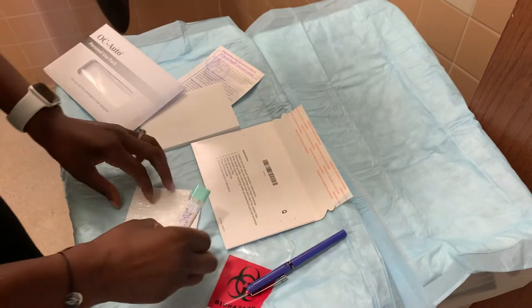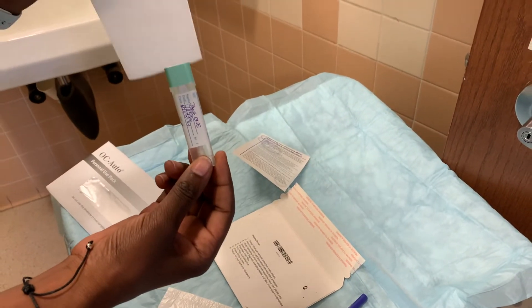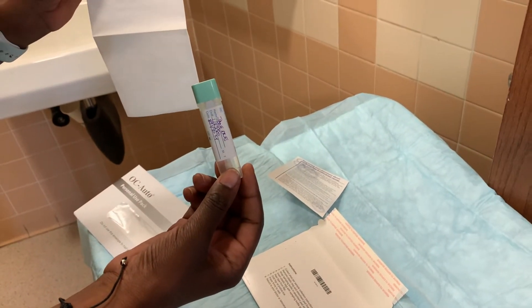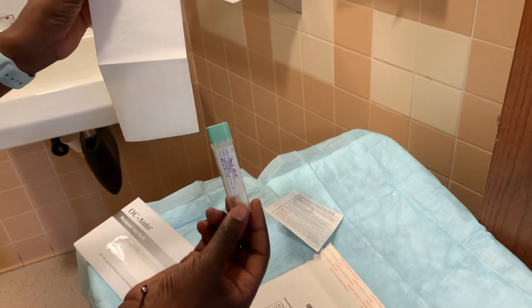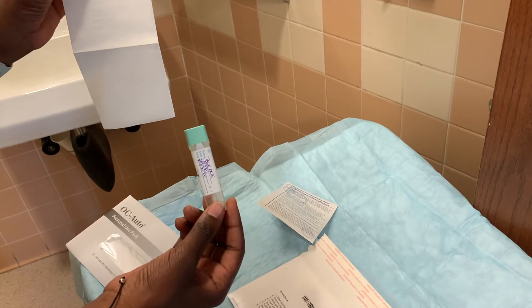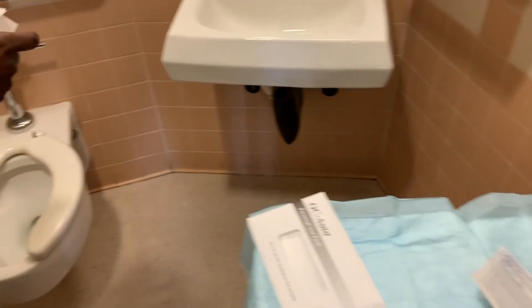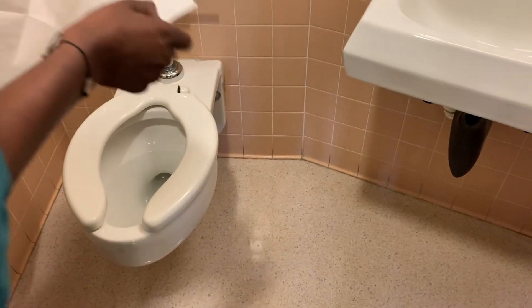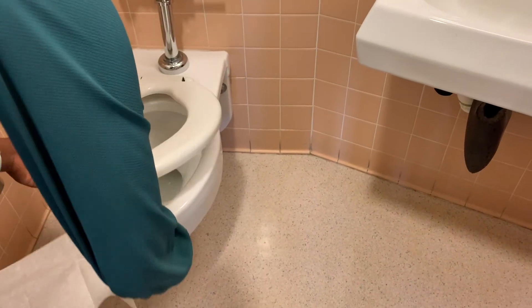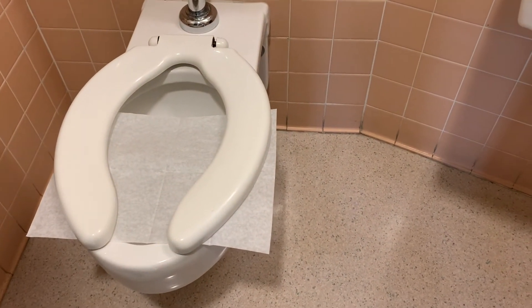And once you're ready to go to the bathroom, all you need is the kit and this tissue. Khi bạn đã chuẩn bị để đi vào toilet thì bạn phải đem theo cái đồ dụng cụ thử phân và cái miếng giấy bự này. First, you're going to put the tissue under the toilet seat. Đầu tiên hết, bạn phải để miếng giấy bự này để dưới bột cầu của bạn.